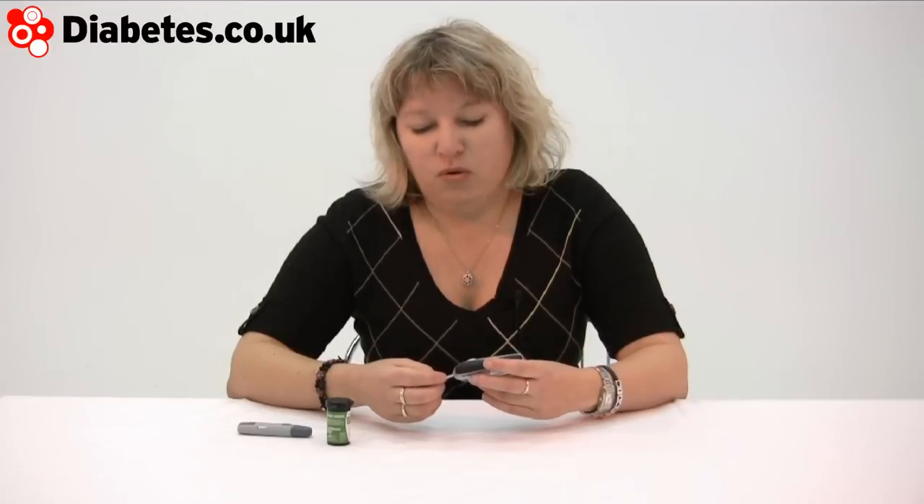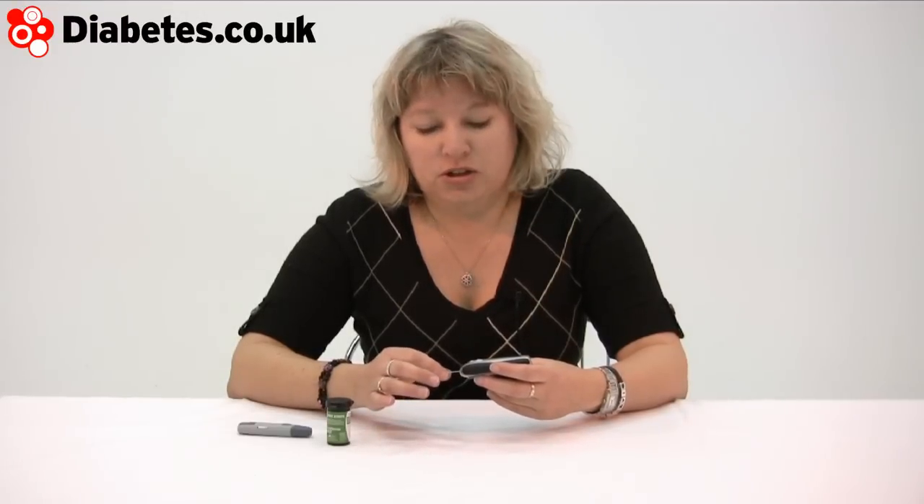The technology behind this is slightly different from most of the other blood test machines on the market. Blood glucose is actually made up of a series of sugars and the reagents in the strips are all slightly different. For most of us just going through our daily lives having a blood test, most meters do exactly what you need them to do. However, there are some arguments out there in cyberspace about the need for better testing of certain sugars, and WaveSense comes at the technology from that direction.